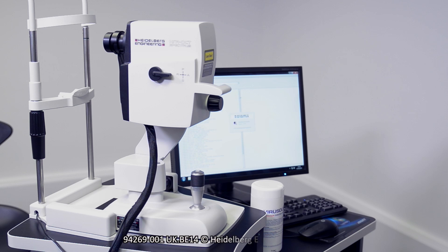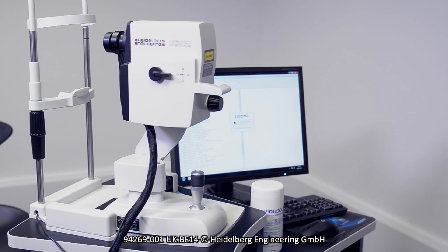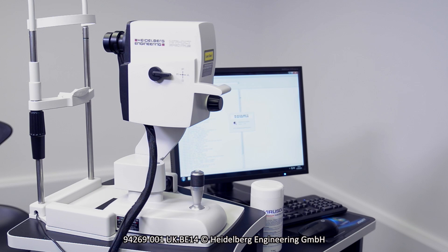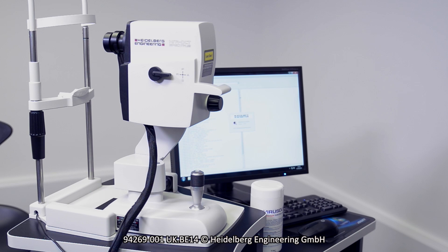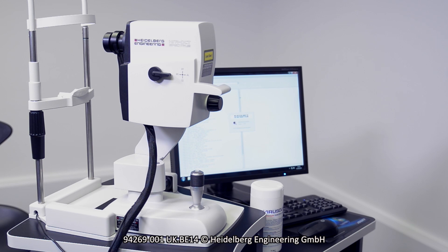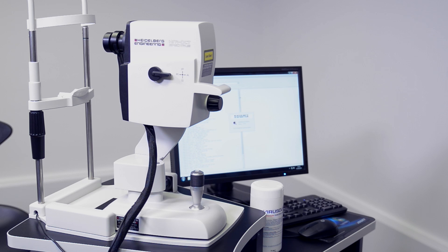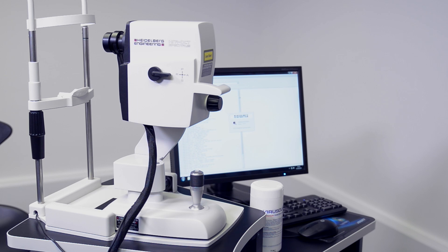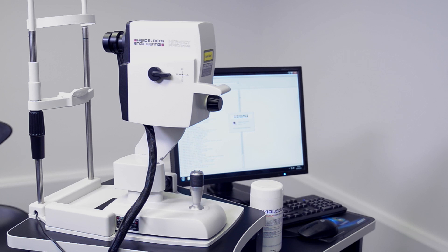Following the structural analysis you have observed in this video, what would be your differential diagnosis, diagnosis, and advice to the patient? Would you monitor, review, or discharge the patient from your care?